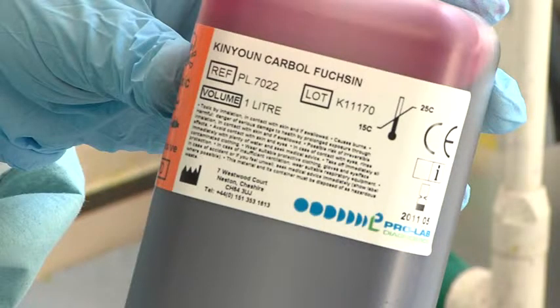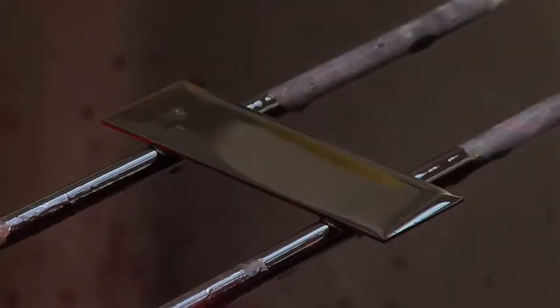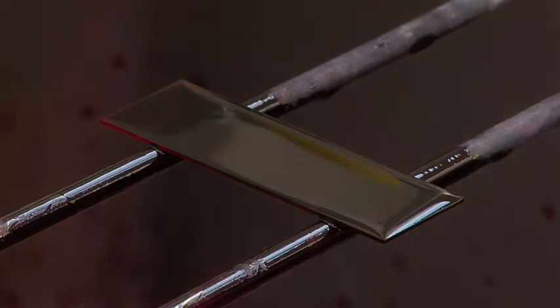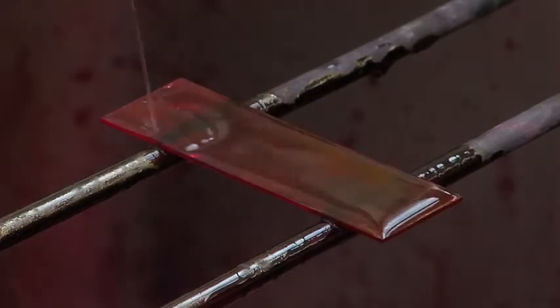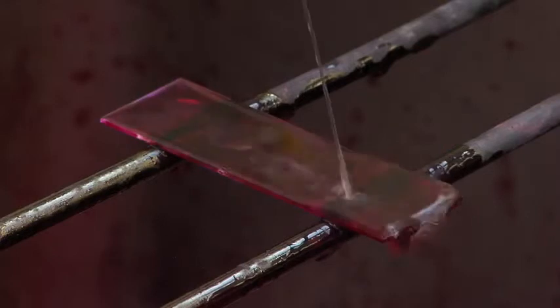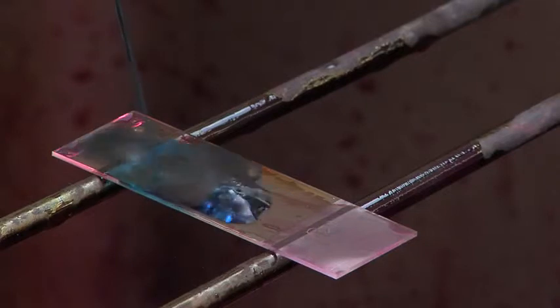Positive patients require prompt anti-tuberculous treatment, infection control isolation if they are inpatients, and tracing and treatment of contacts needs immediate follow-up. An alternative stain is the Kinyoun cold ZN stain, which uses Kinyoun's carbolfuchsin for 10 minutes, which has a high concentration of phenol in it, and it does not require heating as you would need to do for a regular ZN stain. After the carbolfuchsin, 3% acid alcohol is added for 5 minutes, and then counterstained with malachite green for 30 seconds.